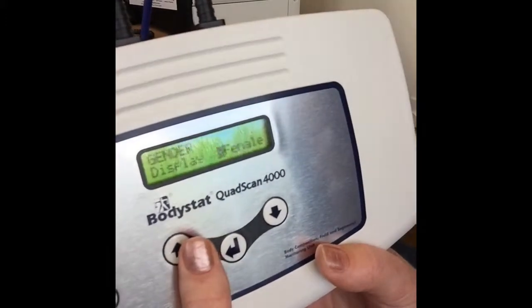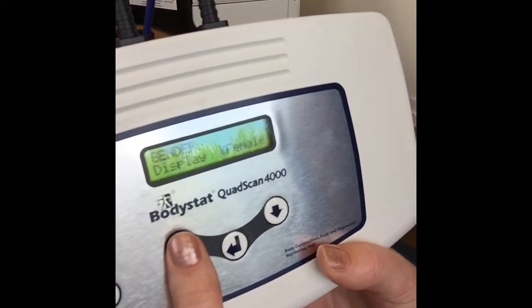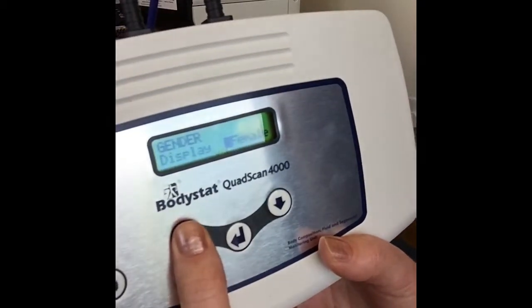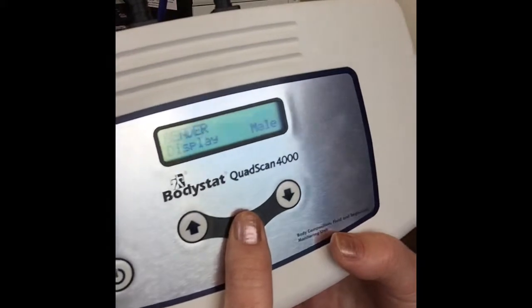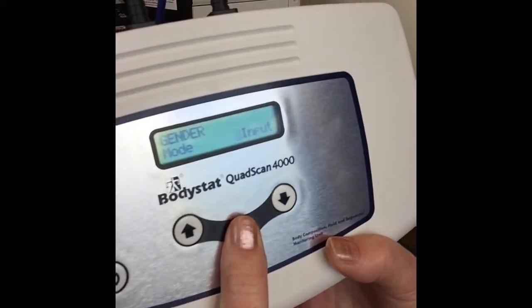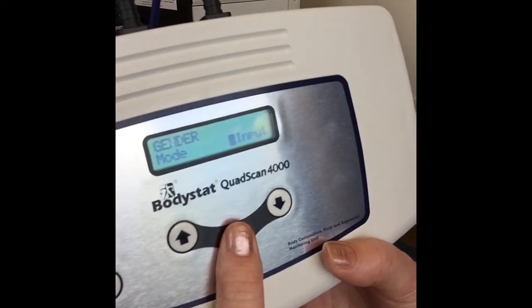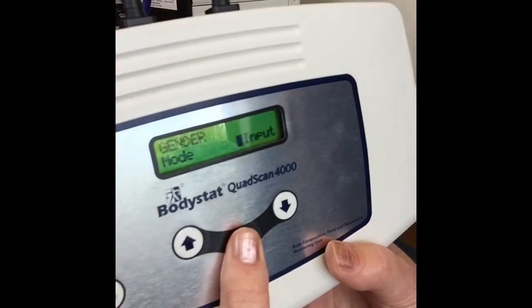The next option will be your gender, so you can have this defaulted to either female or male depending on your population group. Scrolling to male and pressing enter, the next option you have is to have that as an input, which means you can customize the gender at the time of the measurement.